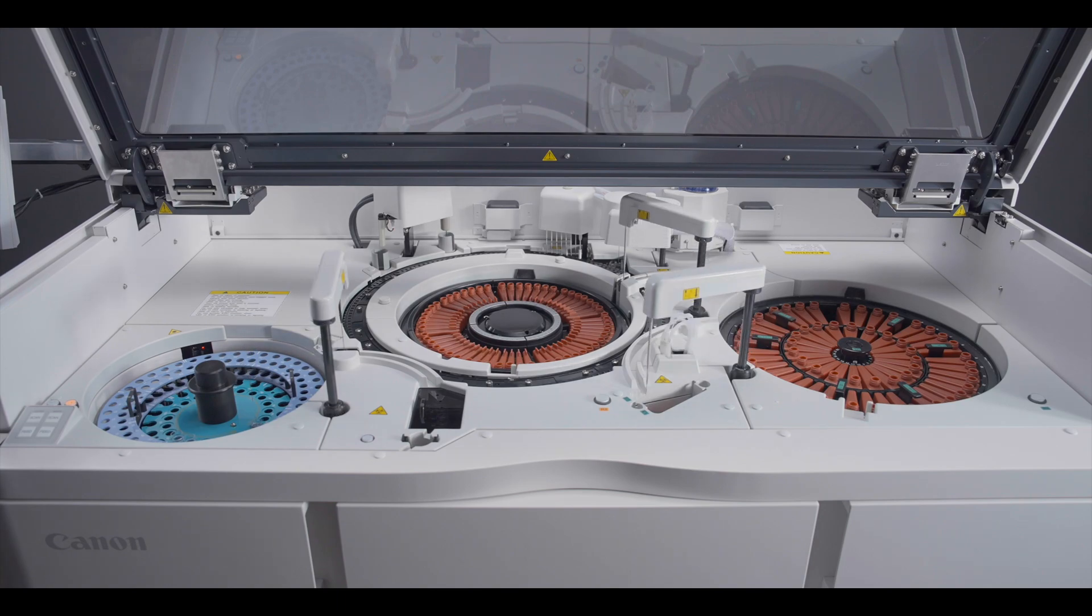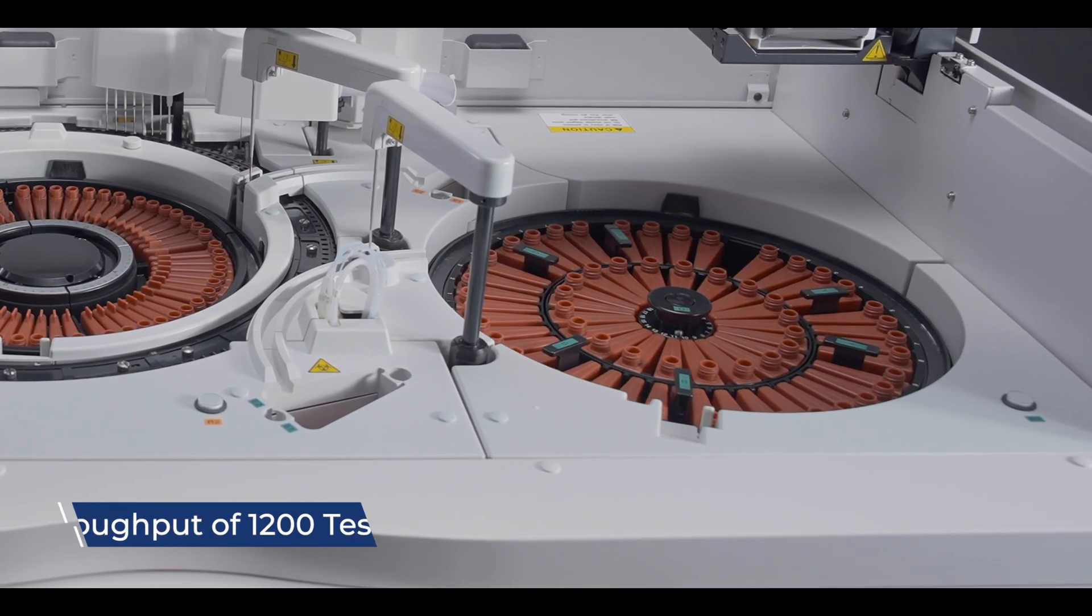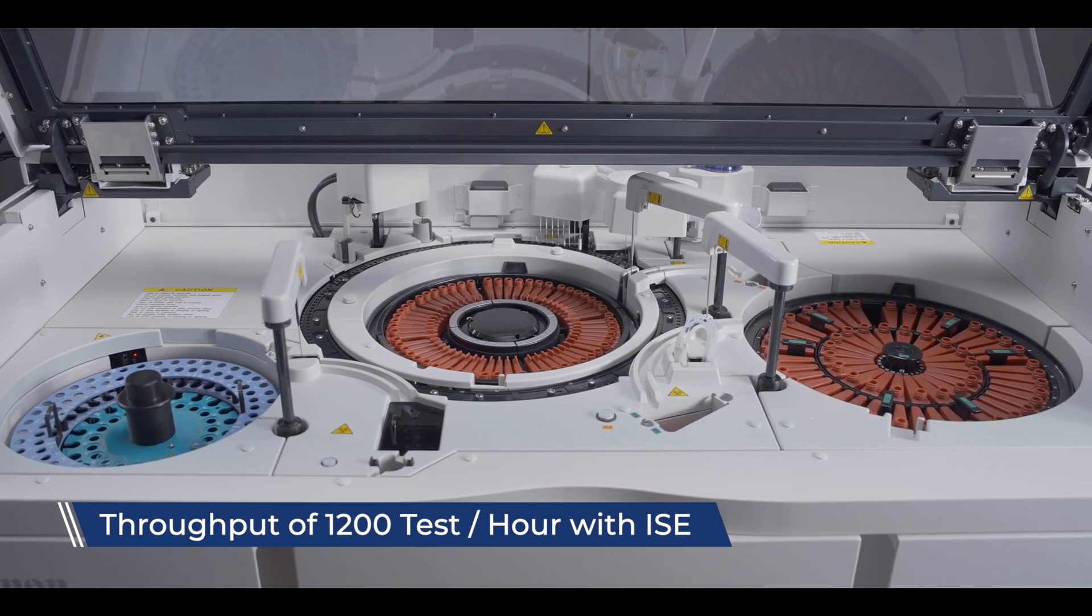Leveraging cutting-edge engineering technology, the TBA-120FR achieves a consistent throughput of 1,200 tests per hour with ISE capabilities.